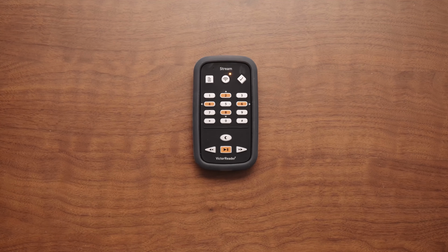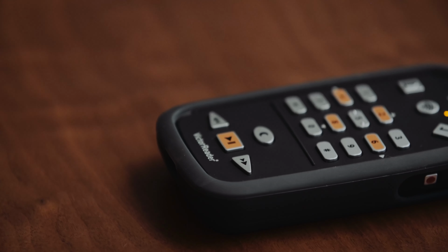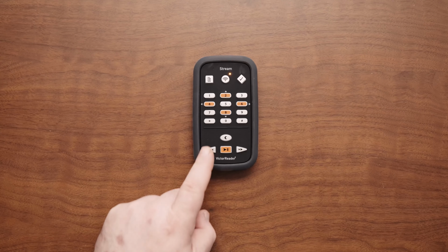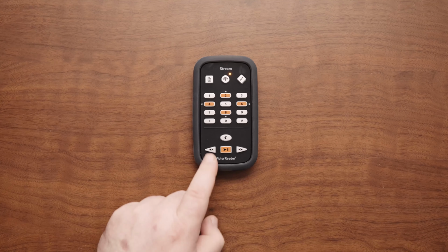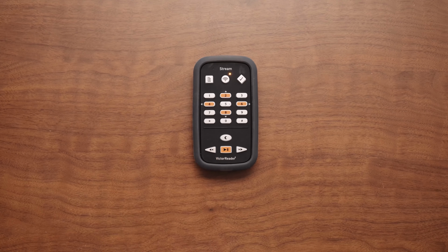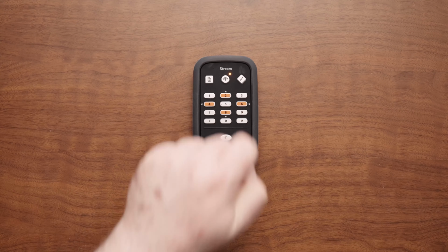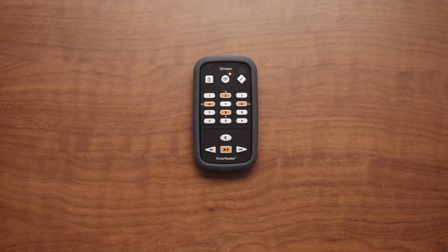Keys to know when you are entering text. Press the fast forward key to announce what you have typed. Press the rewind key to erase the last character typed. Press and hold the rewind key until you hear a beep to erase all the characters at once. Press the bookmark key to toggle between lowercase and uppercase entry. Press the sleep key to turn on or off key describer mode when entering text.